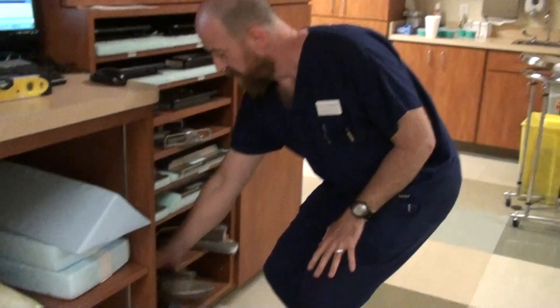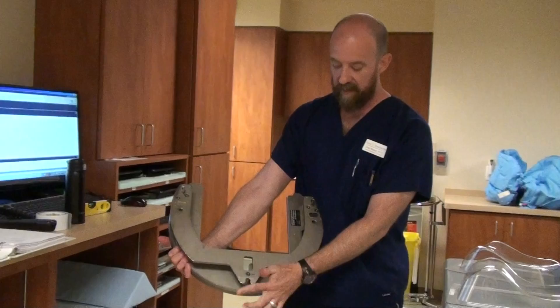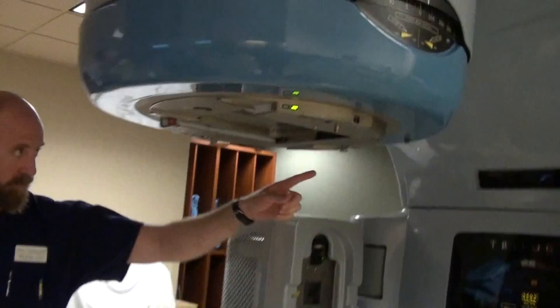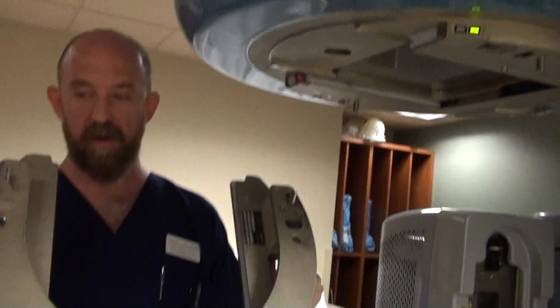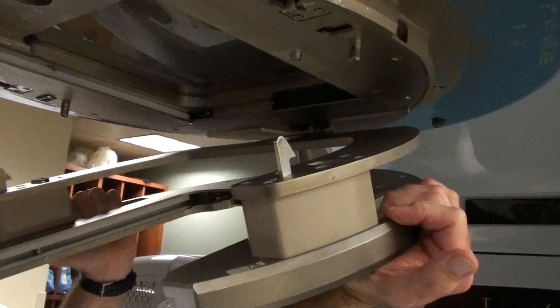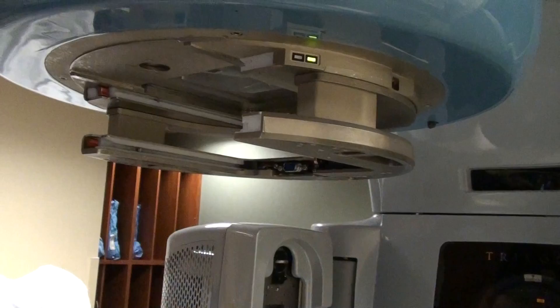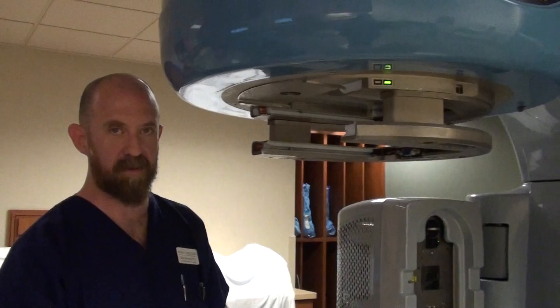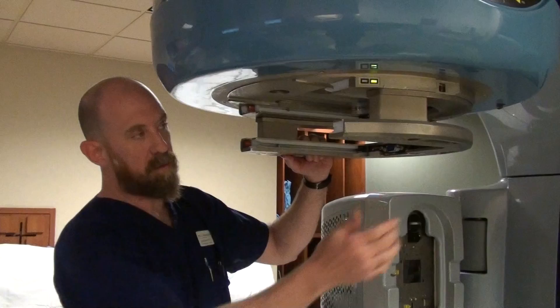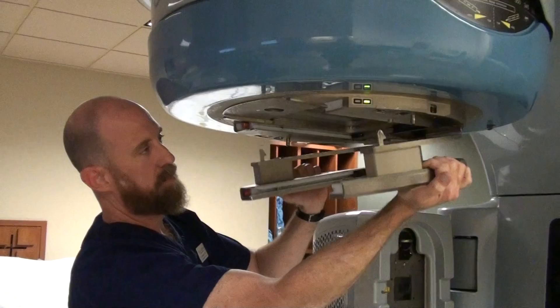We have an accessory mount, sometimes called a toilet seat because it looks like one. On a Varian unit, there's a U-shaped hook that fits into a knob at the back of the unit, and two little hooks closer to the front that move via buttons on the bottom side. You hook it in with the U-shaped hook and then push it straight up in so it clicks into place. Make sure it's actually clicked into place — you don't want this falling off on a patient. Taking it off is the reverse: push both buttons to move the hooks back, unhook it, and bring it back toward your body.